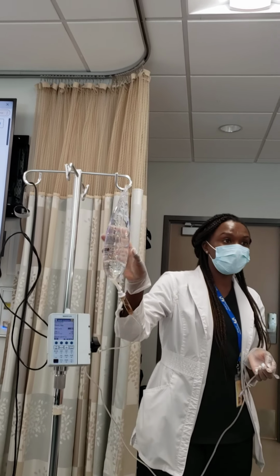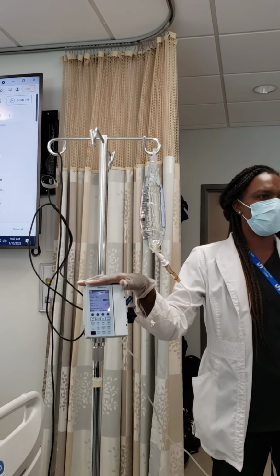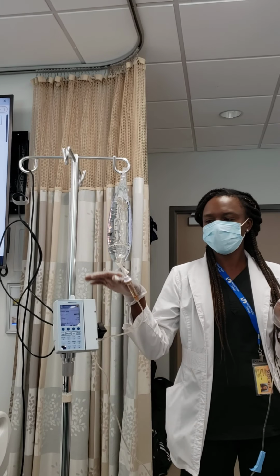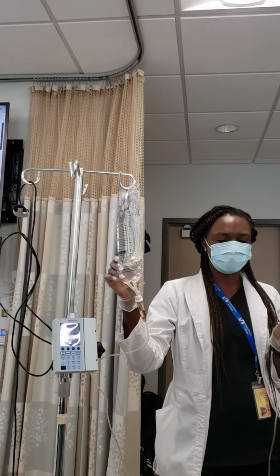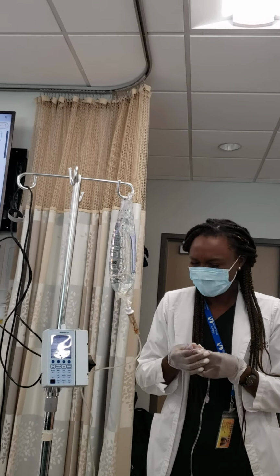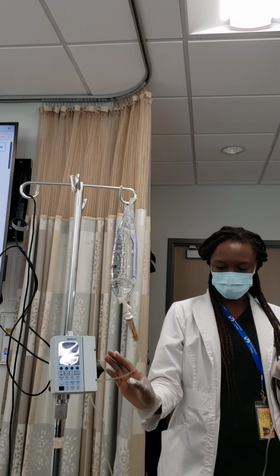But in terms of priming the line, because we're testing on priming, only the priming. I'm just showing you what comes along with it. Okay. Thank you. The only thing you're testing on is priming the line. That's it. We don't have to put it in the pump when we come here next Monday. Nothing. Prime. Just so you know, please don't confuse yourself. I'm just doing these extra steps to give you more than what you're paying for. That's it. I'm just trying to help you. All right. Thank you. But only priming the line, making sure that there are no air bubbles, and you know how to prime it.